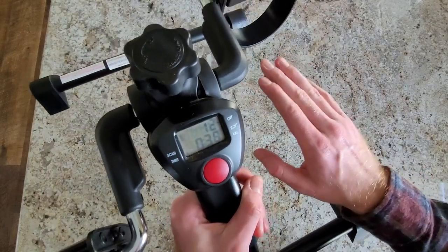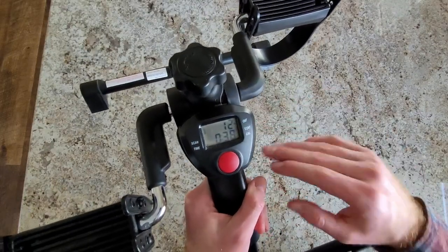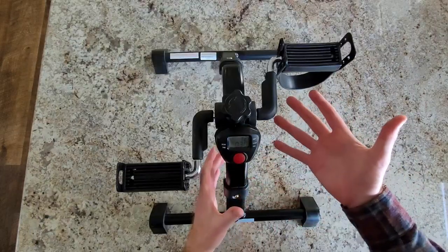This is it. So I've made, so far, 12 rotations with my hand. It counts all that, it builds up. It tells you the calories and how long the time that you've been pedaling.